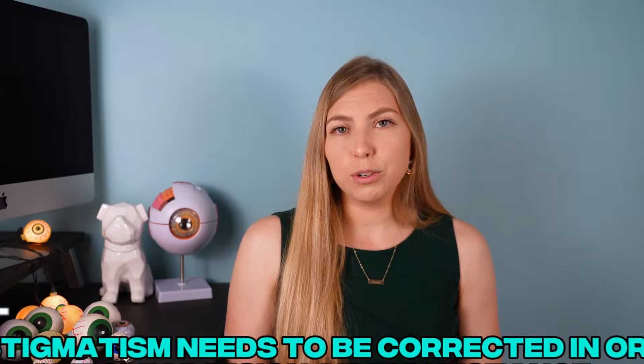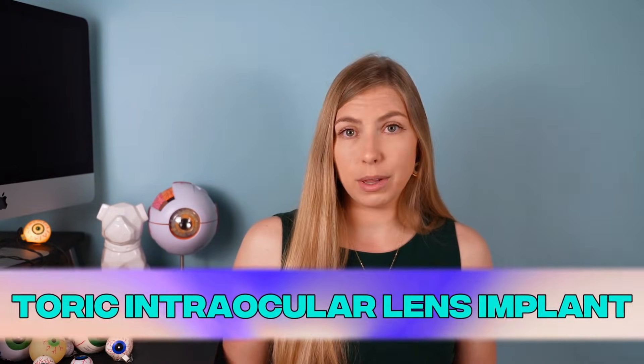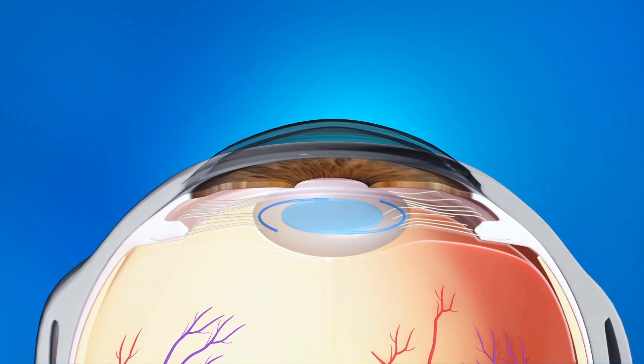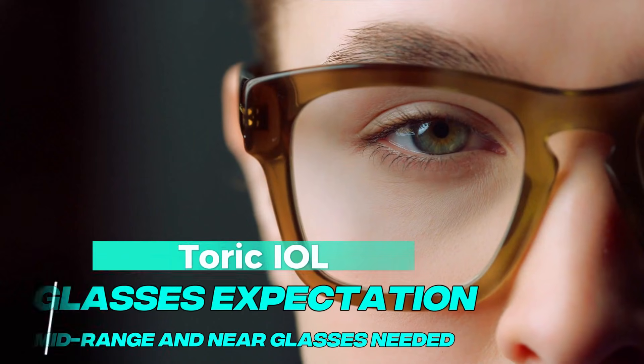The first option, and probably the simplest and easiest to understand, is the toric intraocular lens implant. When you hear the word toric, that refers to something that corrects for astigmatism. A toric intraocular lens implant will be inserted into the eye after the cataract is removed — it's kind of like having a permanent glasses prescription in your eye. The goal is that the prescription compensates for what your eye needs to give you clear vision. This lens will most likely be used to correct your distance vision, and you will need to wear reading glasses after surgery.